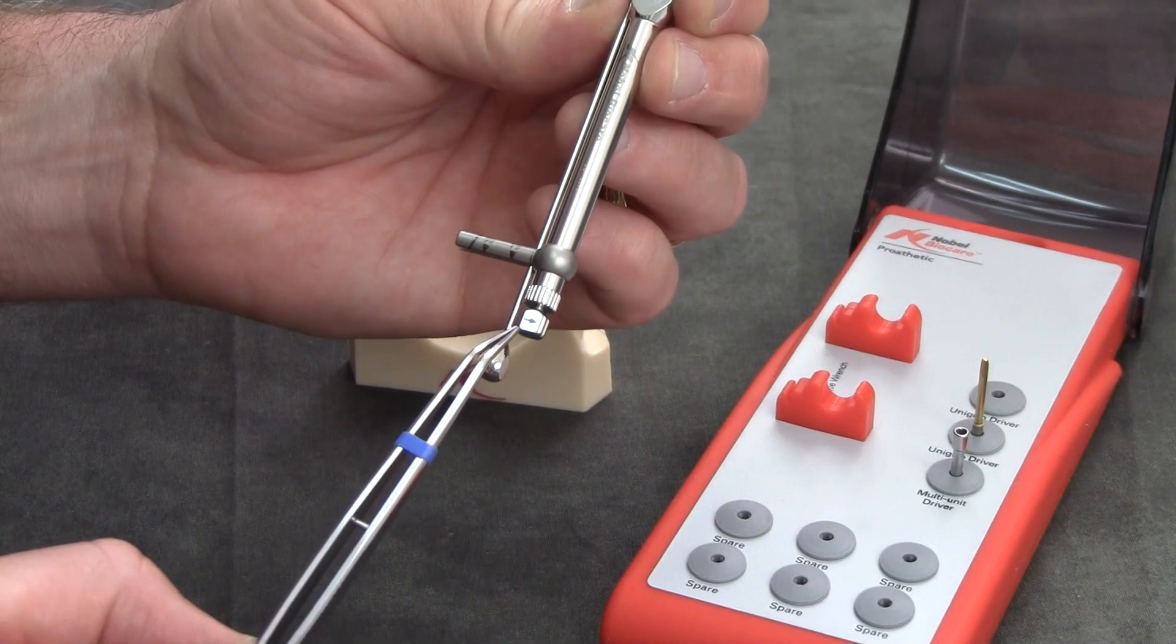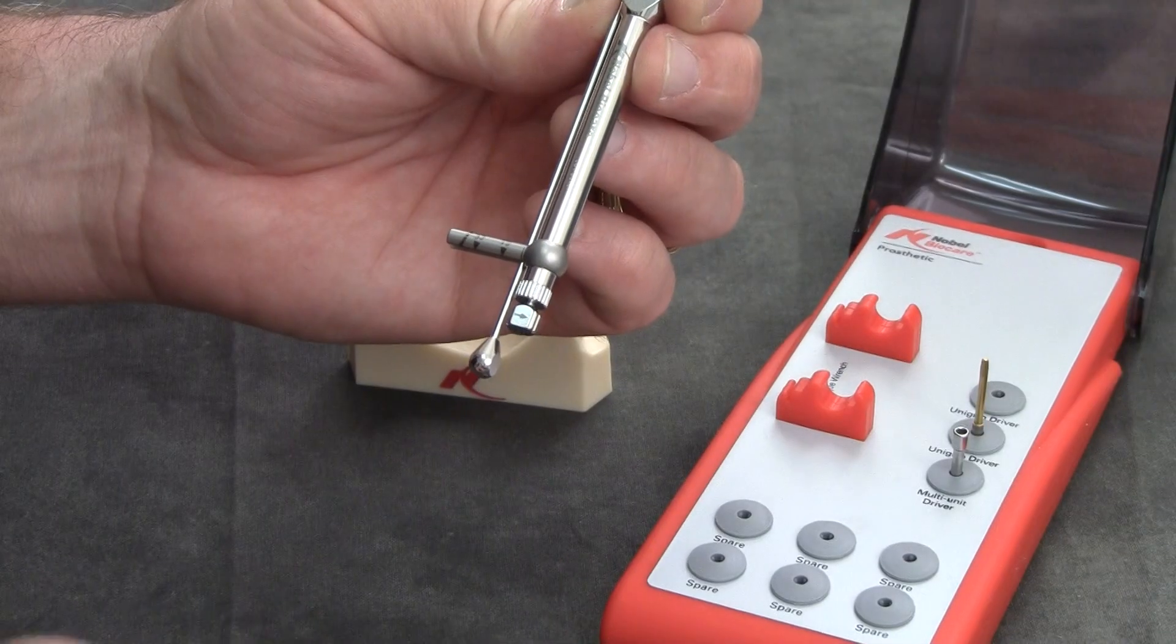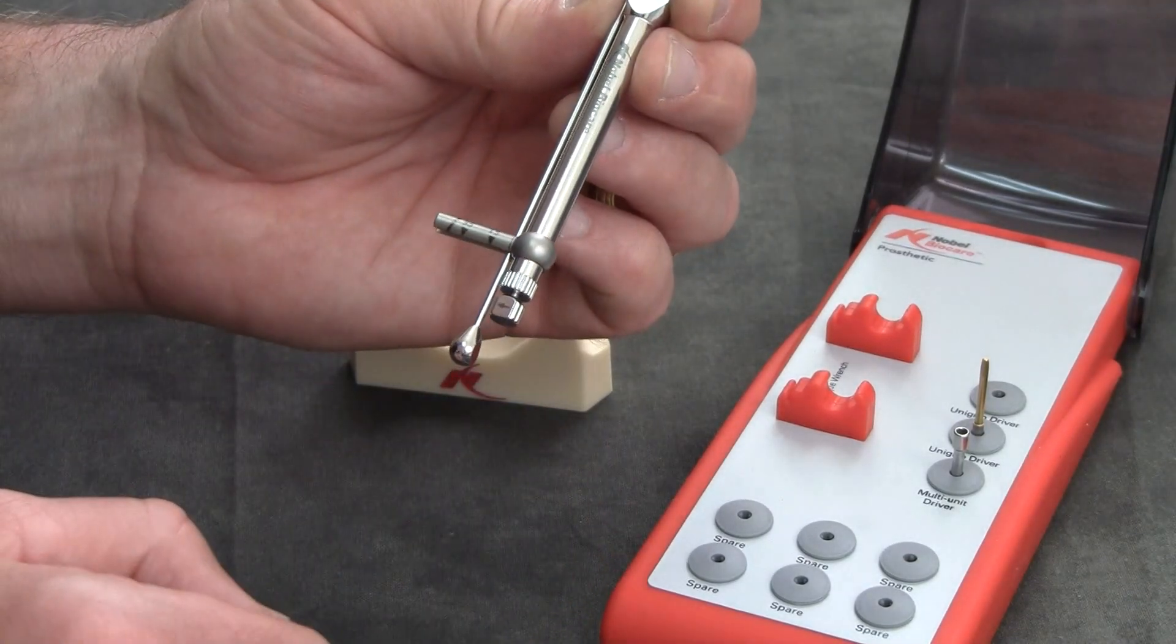As you can see now, the direction indicator arrow is facing the wrong way. So I'm going to pull it out, turn it, and we're ready to go.